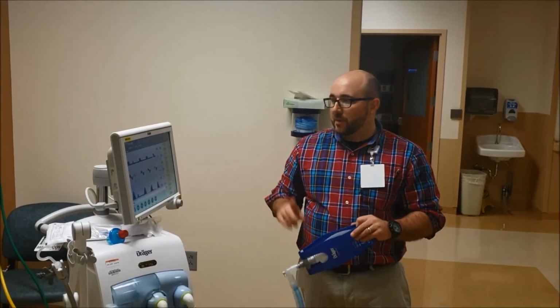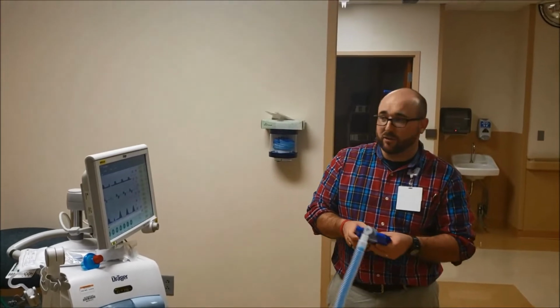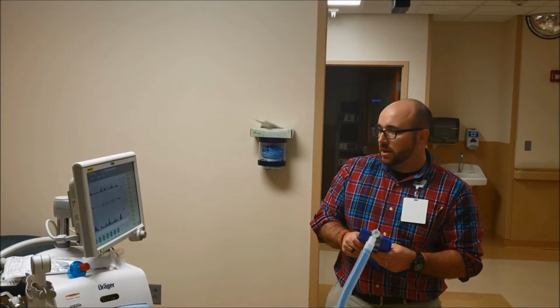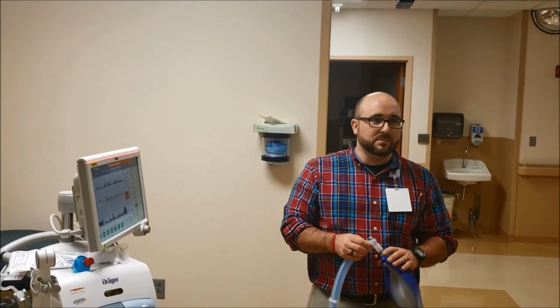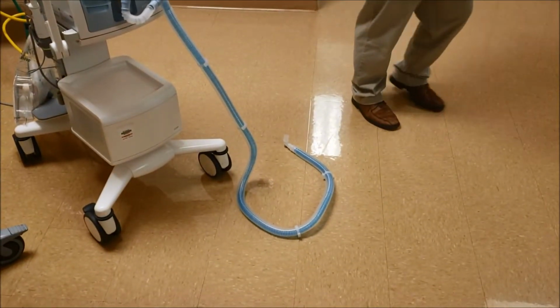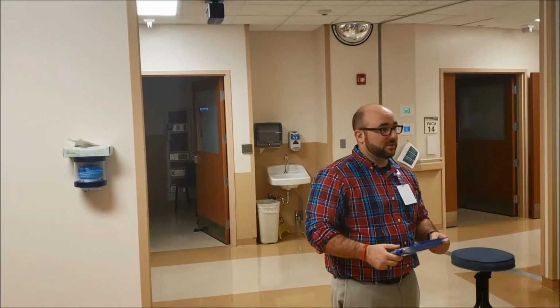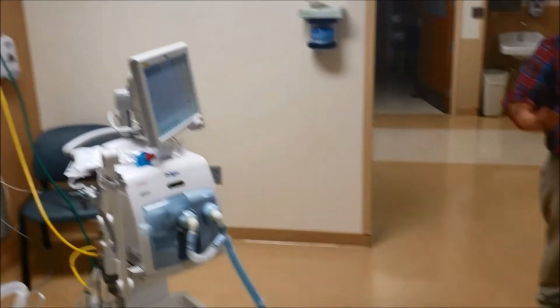So I want to show you this again. If they're coughing again and you do that, this is the one downfall to this button. It's a great button, but it's a major downfall. So if they're coughing, they're peak pressuring, you see some mucus coming up, they have a history of increased mucus production, and you go to suction them, and you use the button like this, but somebody calls you from the desk or something, and you leave. If they pop off during that time, it is not going to alarm. So if you turn around, the next alarm you're going to see is probably your pulse ox alarm, or hopefully not heart rate. Because right now this is normal for this machine, it thinks, okay, they're off, they're suctioning. So that's the only downfall.